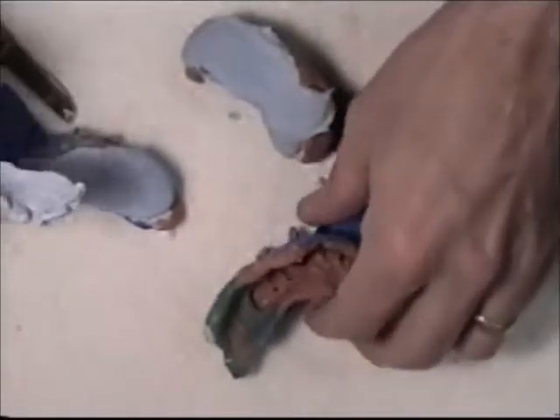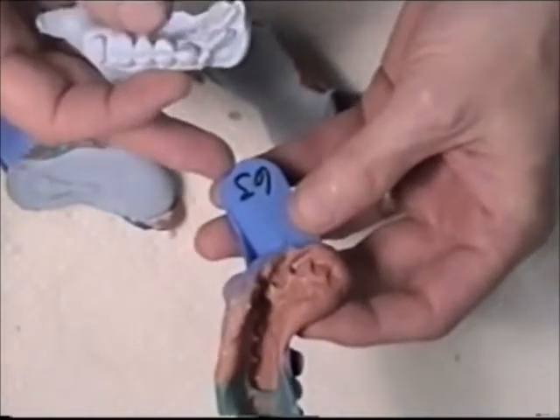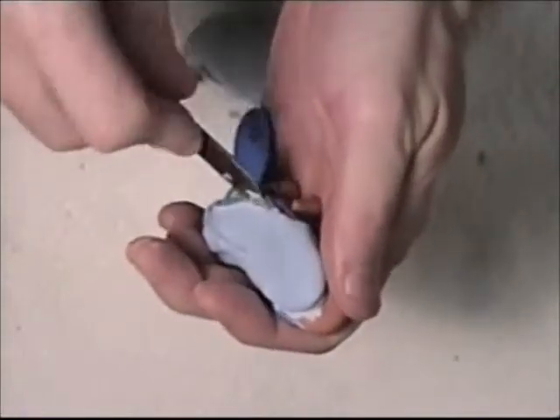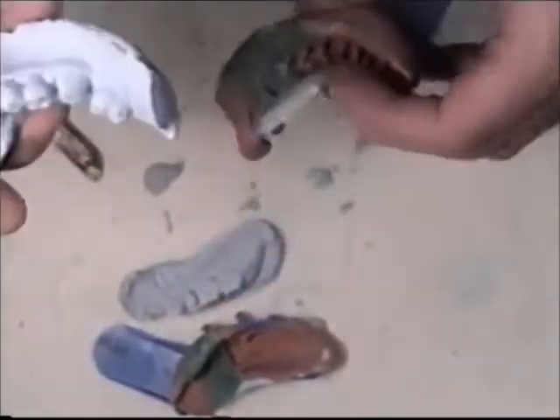At this point, you want to mark your models in relation to the impression that you just separated. I will mark the number here to my impression and go on to the next one. This one looks good as well.